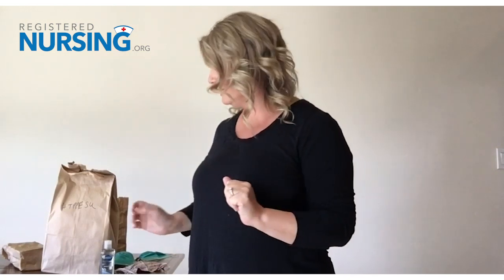Make sure that you are washing your hands frequently. For demonstration purposes for donning and doffing today, I'm not going to be putting on and taking off gloves, but I will be doing hand hygiene in between the steps.